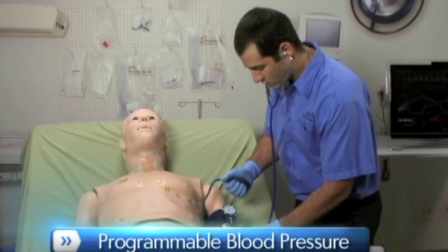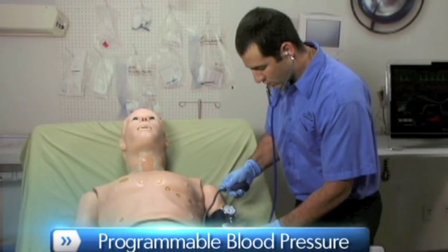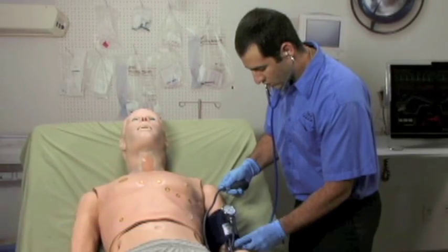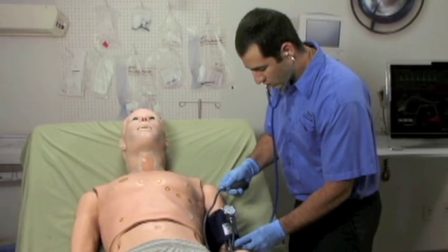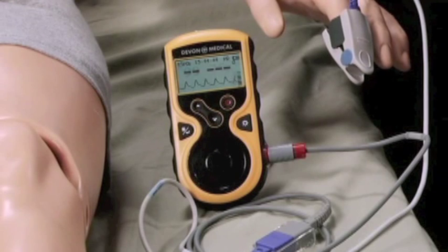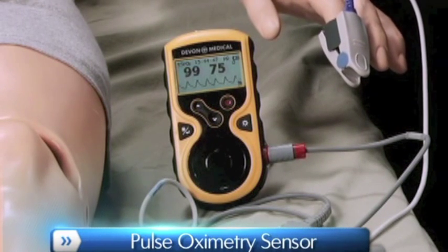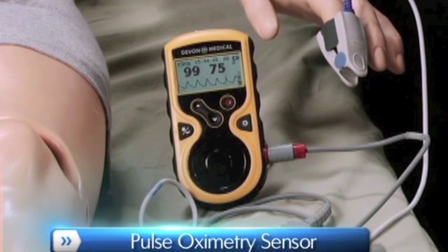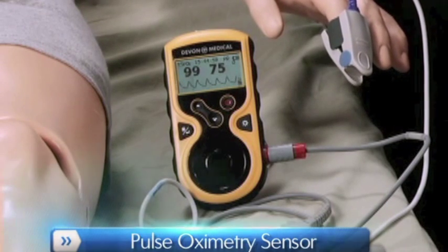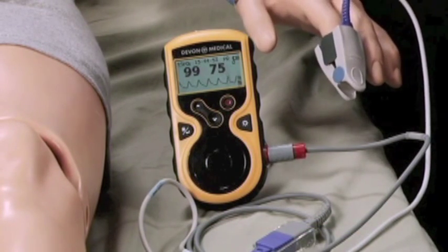Programmable blood pressure can be read using a real sphygmomanometer, and providers can auscultate the Korotkoff sounds. HAL also features a pulse oximetry sensor within the forefinger of the left hand, allowing providers to attach commercially available pulse oximetry devices.